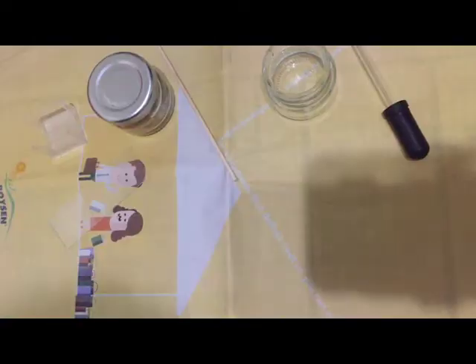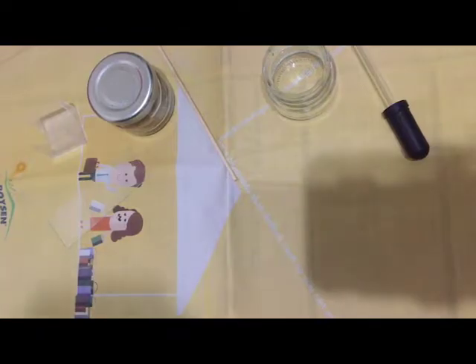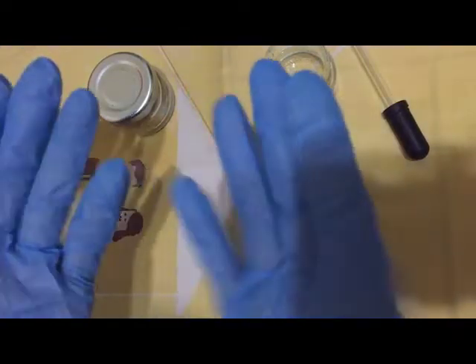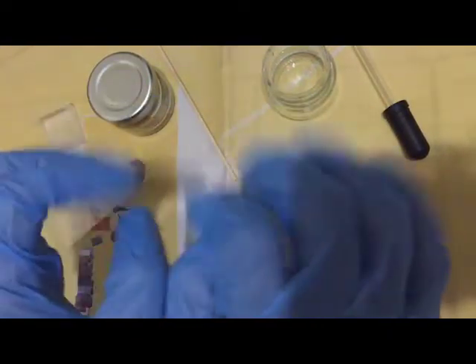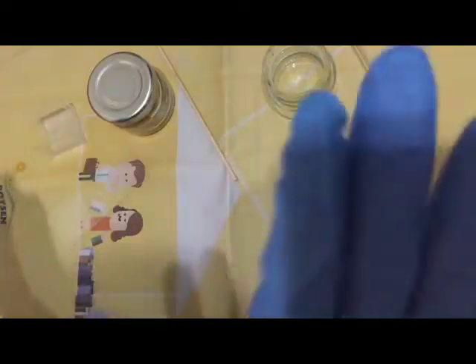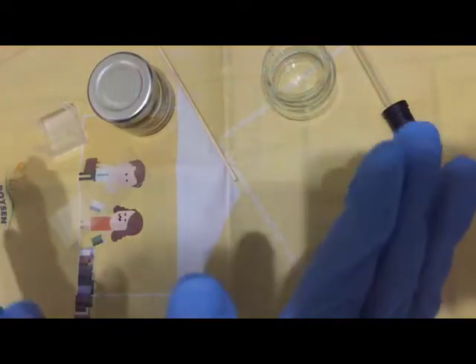To prepare for any stool examination, one must set the working area. You have to make sure that you are wearing gloves prior to any stool examination preparation.